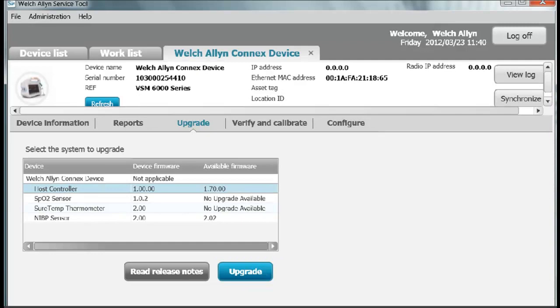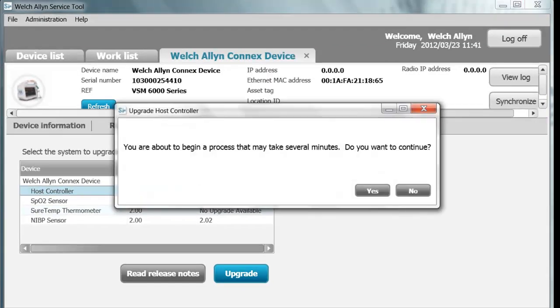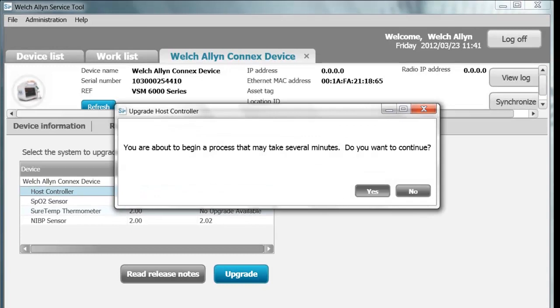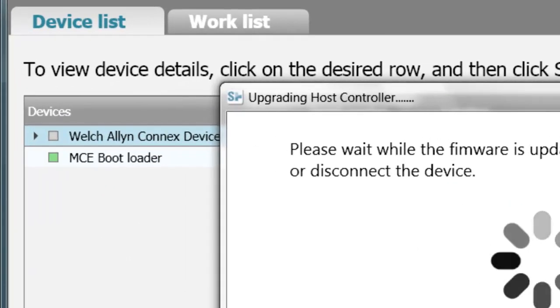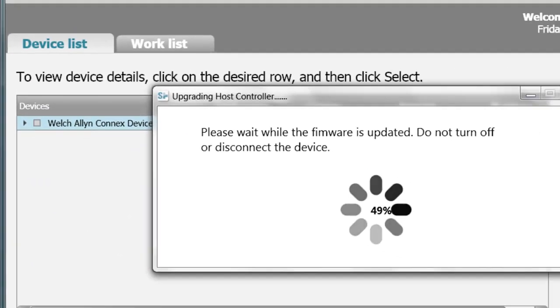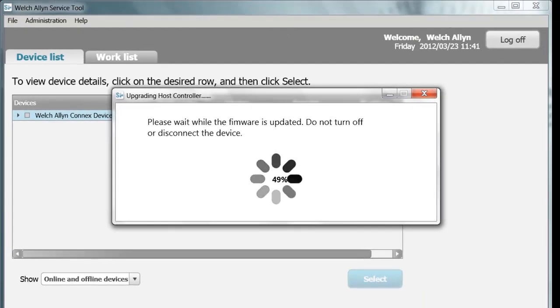The software release notes tell you what that software does, including bug fixes and additional software features. Clicking on Upgrade, the Service Tool tells you that you are about to begin a process and asks if you would like to continue. Click Yes. The on-screen display of the device disappears while the device shuts down and reboots. You'll see the MCE bootloader. There are two versions: one is the bootloader, and from 50 to 100 percent is the actual software upgrade.